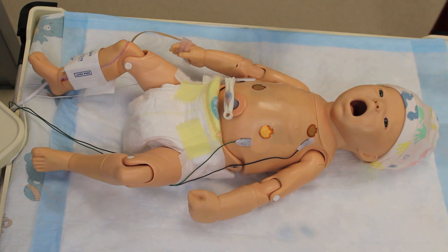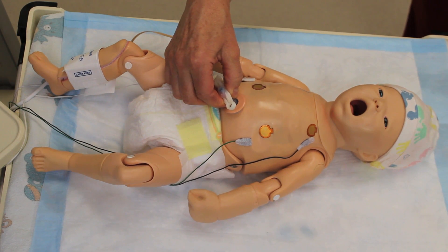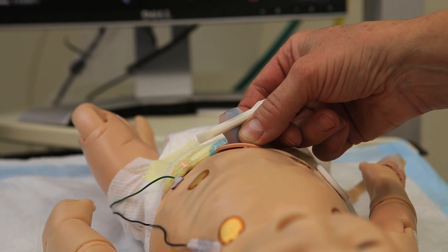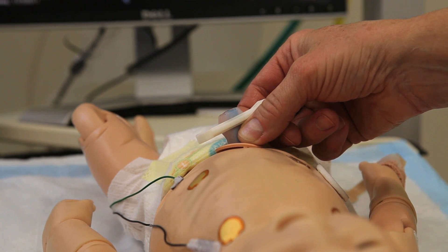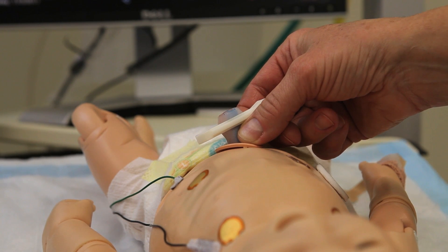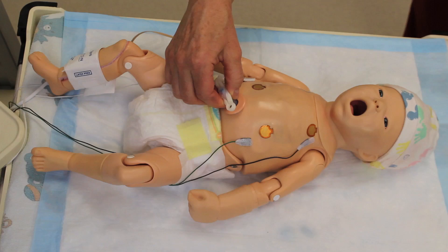If the baby is newly born, you'll also be able to palpate pulses at the umbilical cord. The pulses are much more easily felt if you put on an umbilical clamp first. Be certain that you don't squeeze too hard when you're feeling the pulse because it will be difficult to feel if you press too much.